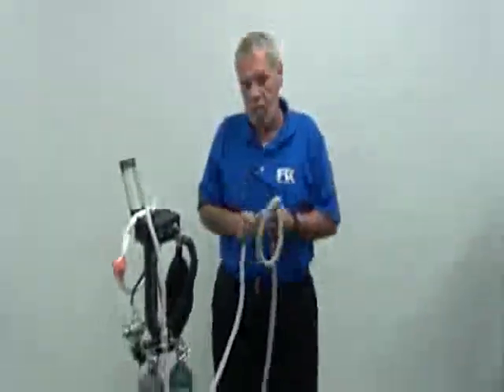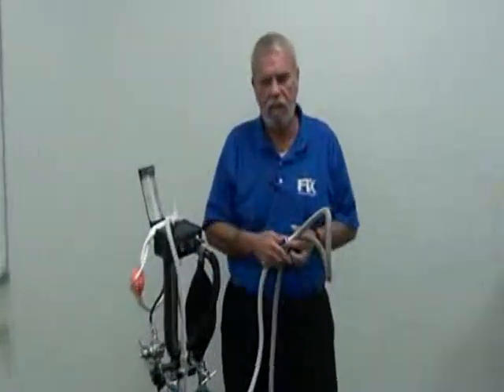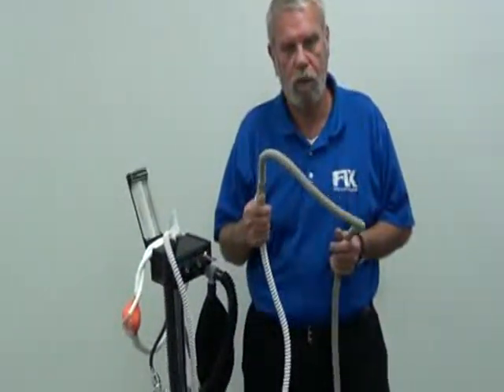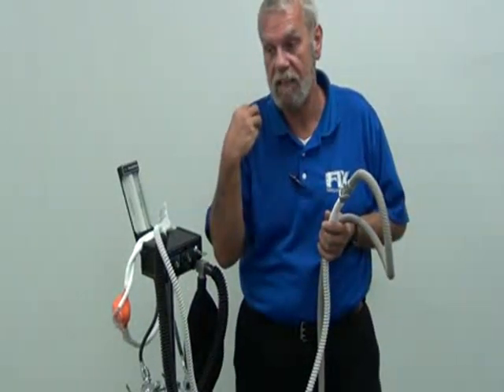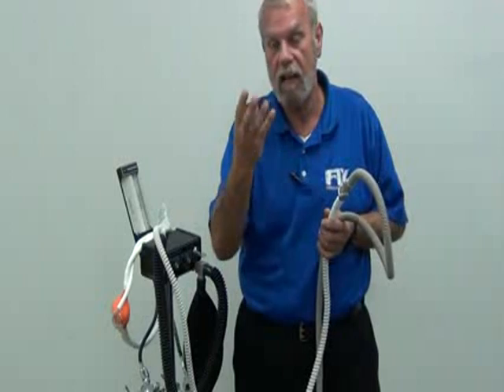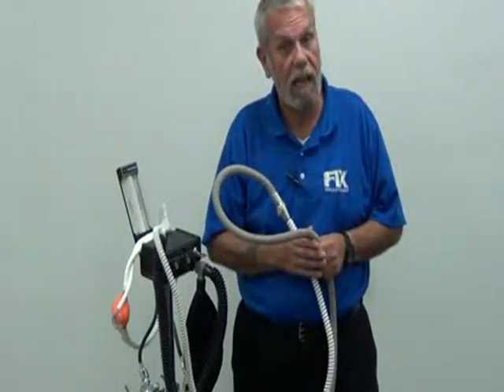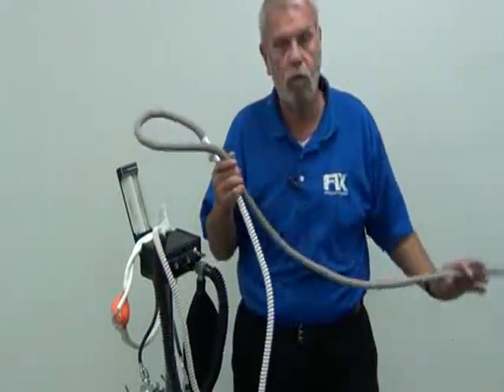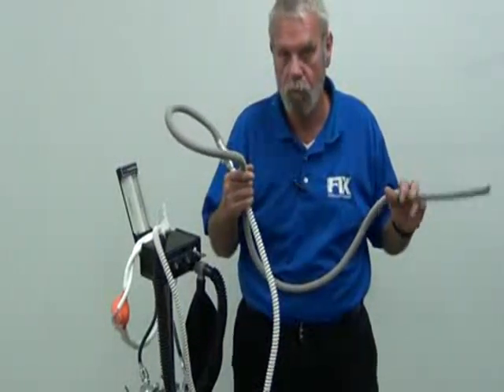One of my biggest problems with nitrous, and I'm sure some of you guys out in the field have noticed this: my nitrous, it's not sedating my patient. Go in there and check the scavenger rate first. If the scavenger is turned up too high, it's actually sucking the gas out of the nose piece before the patient has a chance to breathe the gas and get the beneficial knockout of the gas. So scavenge very slowly. Set your scavenger rates very low. You want the patient to get the full benefit of the gas and not the vacuum pump, okay?